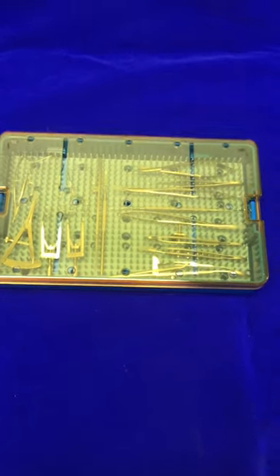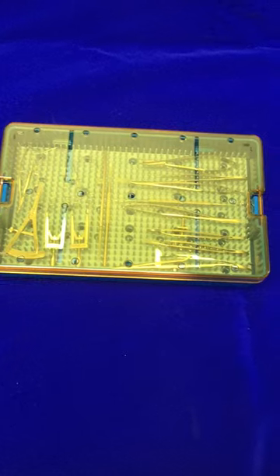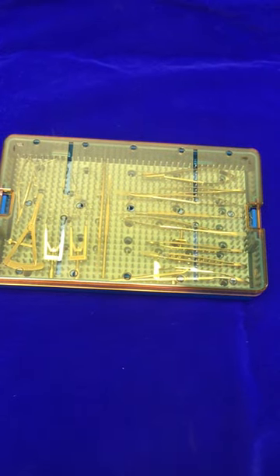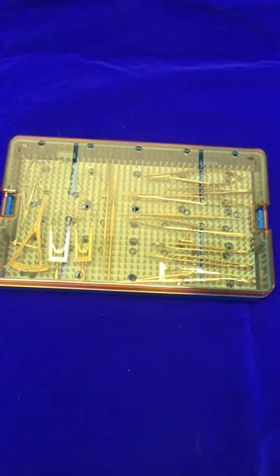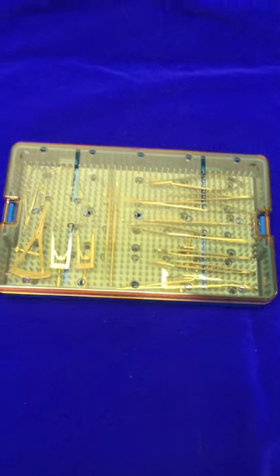Hello everyone, my name is Nick with Accuspire.com. Today I want to show you one of our larger sterilization trays from SteriBest.